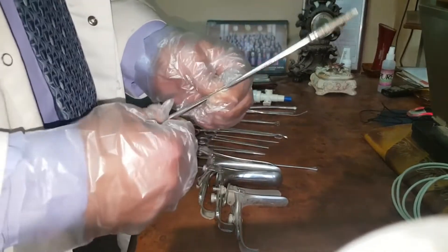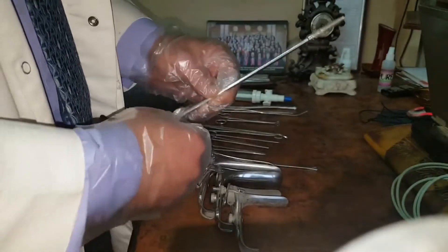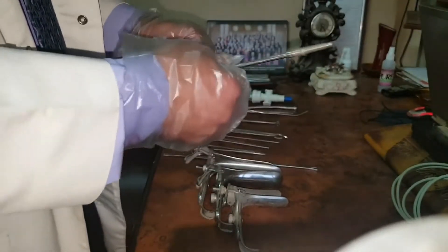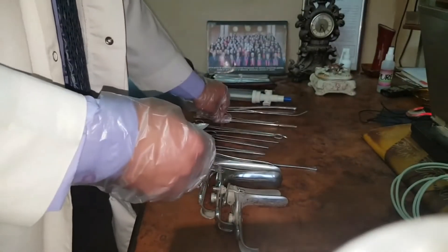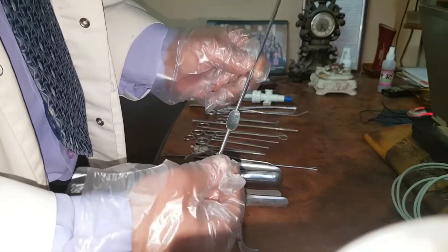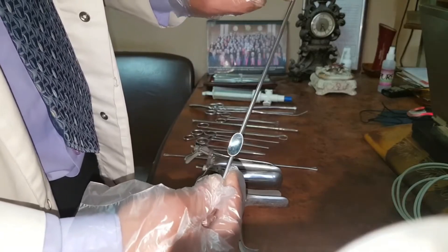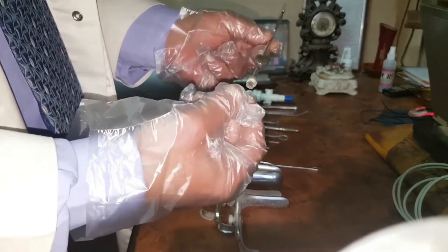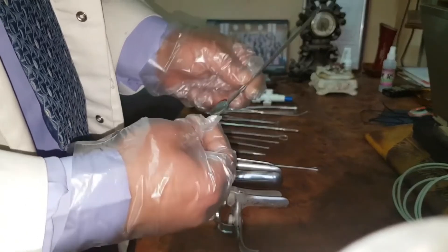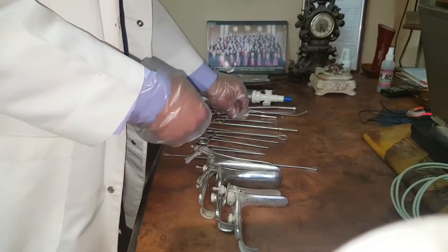This is the hysterosalpingogram cannula, inserted through the cervical canal, and the dye is injected through this part through a syringe to evaluate the uterine cavity and the patency of the fallopian tubes. So this is called the hysterosalpingogram metal cannula. This is a Novak curette used to take endometrial biopsy in the outpatient clinic. You can see the opening here with the serrated edge here, and you can also do suction for the endometrial sample.